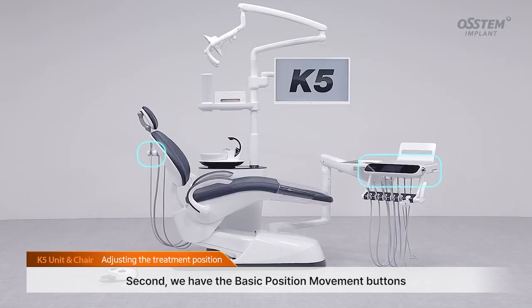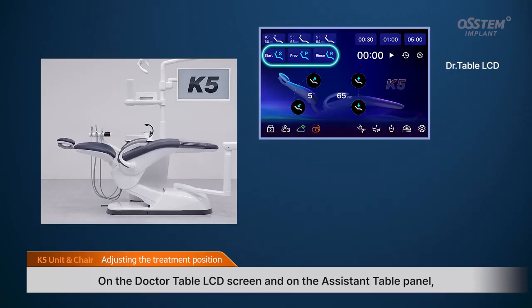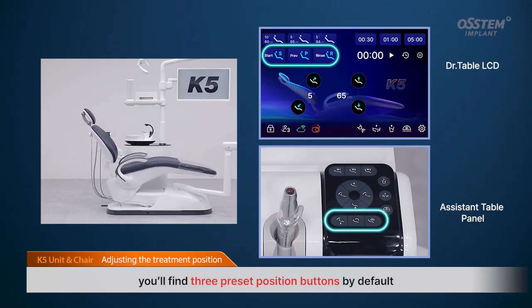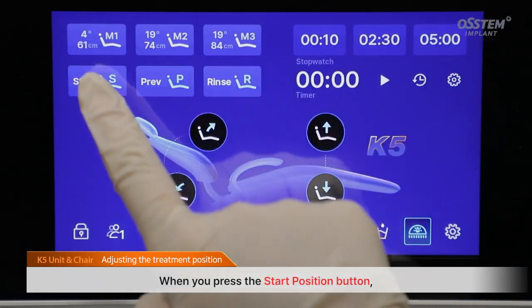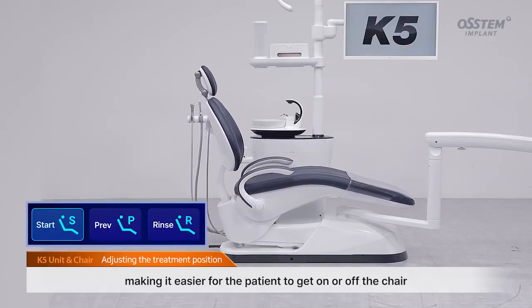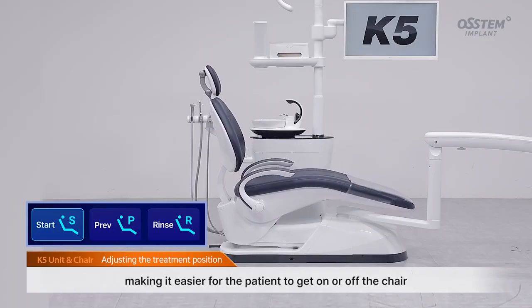Second, we have the basic position movement buttons. On the doctor table LCD screen and on the assistant table panel, you'll find 3 preset position buttons by default. When you press the start position button, the chair moves to its lowest position, making it easier for the patient to get on or off the chair.